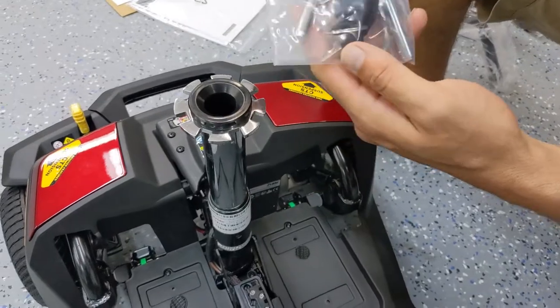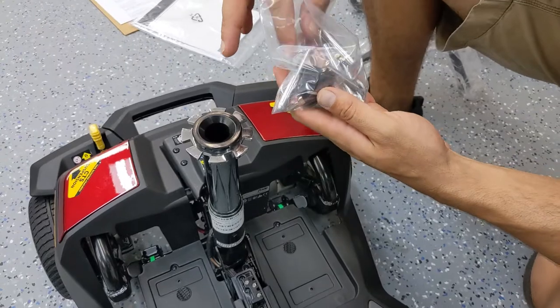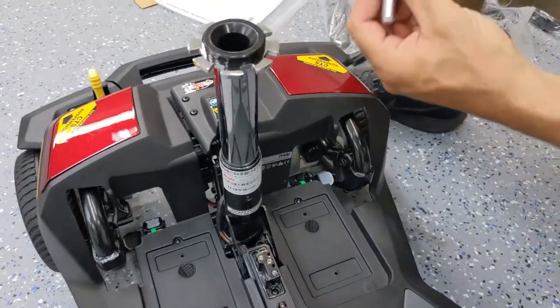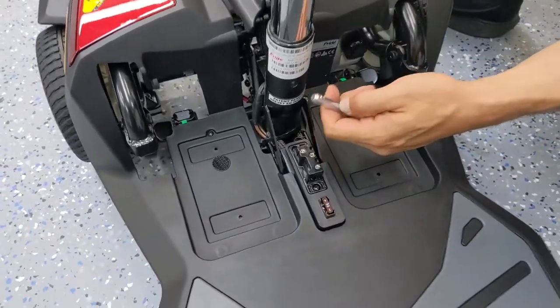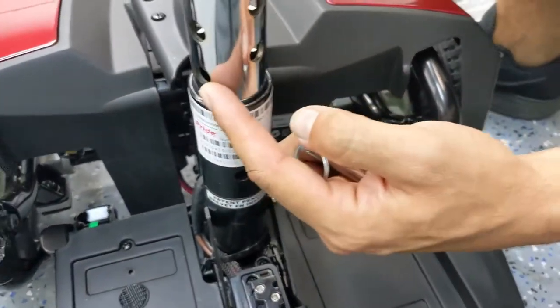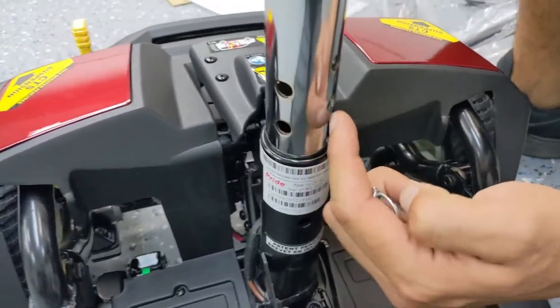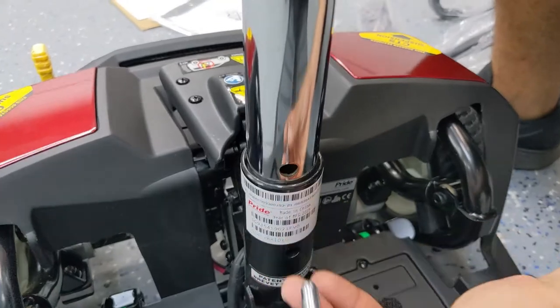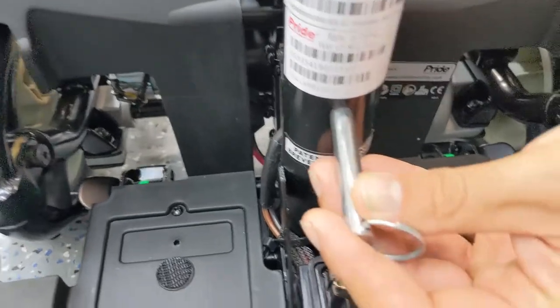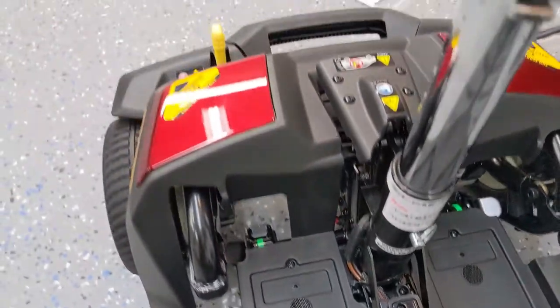You'll see that there are some thin-gauged ones and then three that are actually thicker. You want to grab one of the thick ones. I recommend starting off with one of the medium height options — you've got four different slot options that give you four different heights. I would recommend maybe doing one of the medium ones just to see how it works and then adjust from there. I've lined up the hole — make sure it goes all the way through to the other side. Now we're good to put the seat on.